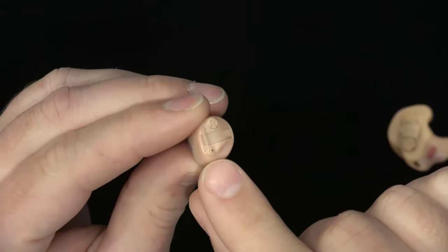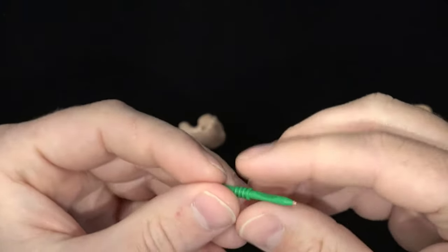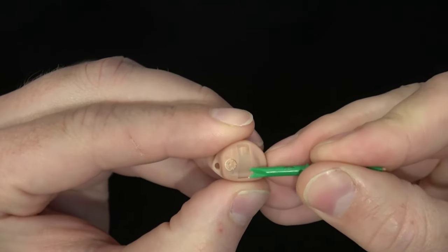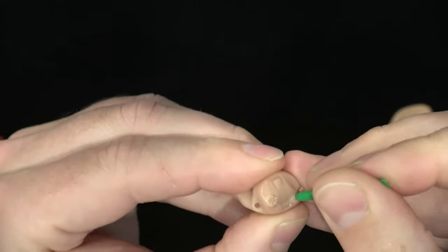For this hearing aid, there is a removable filter here, and here is a pack of replacement filters, and here is how you would remove and replace the filter. If you are unsure of whether you have microphone filters or not, be sure to ask your hearing care professional. I have seen several patients who have had hearing aids for several years but have never even known that their microphones are something that they should be regularly looking at and cleaning if they see that there is any buildup of debris.